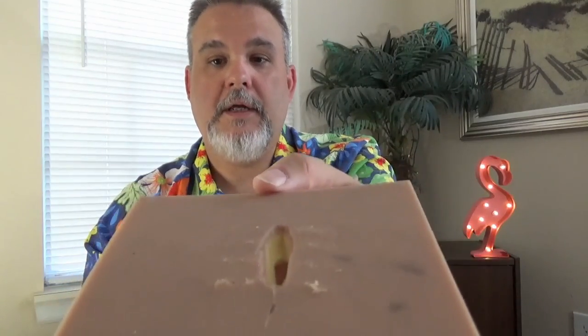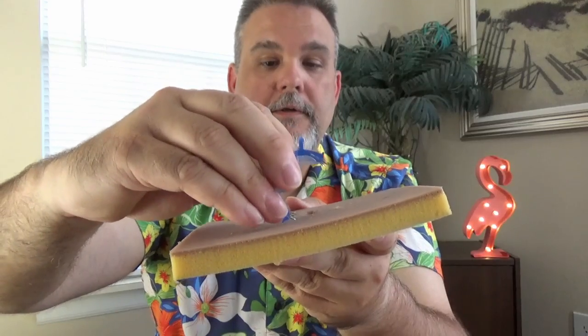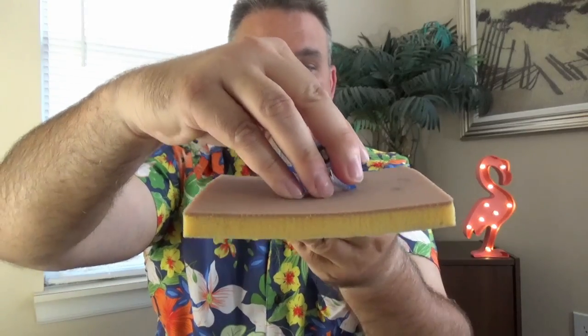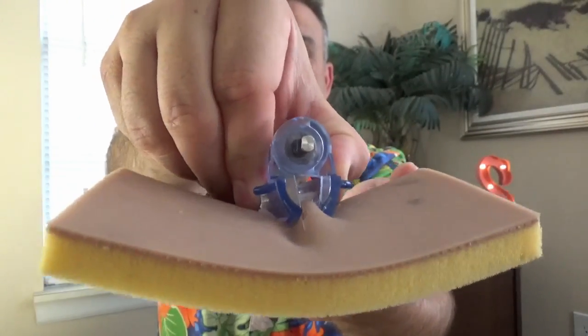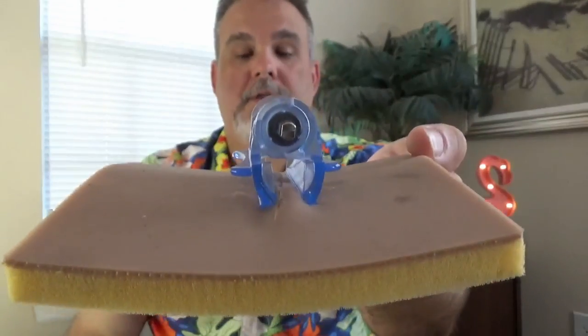Here's my fake skin - you can see the laceration. What you do is take your clamp, put the needles on the edge of the laceration, line it up over the laceration. Once you've got it lined up, you just squeeze them together like that, and that closes up the laceration.